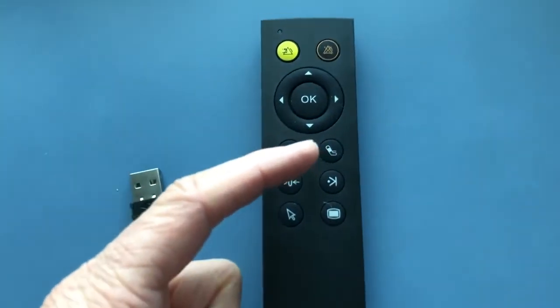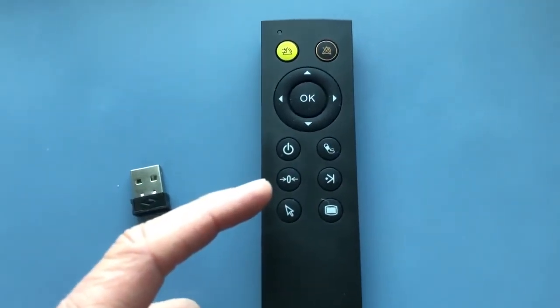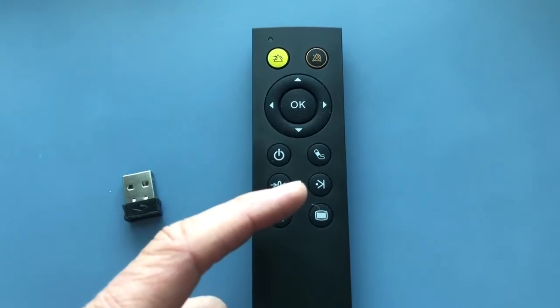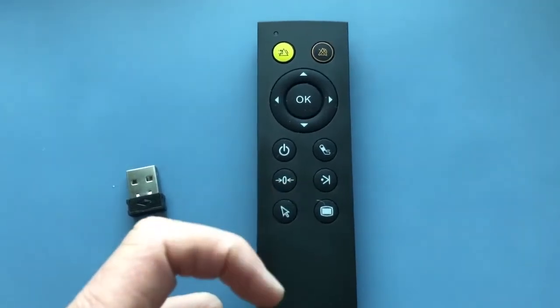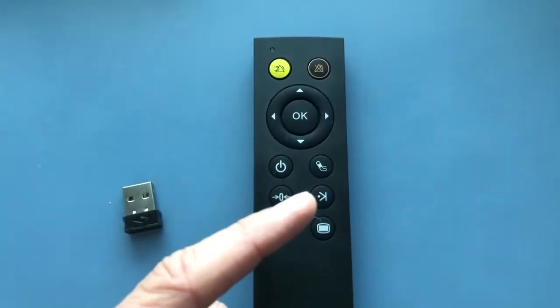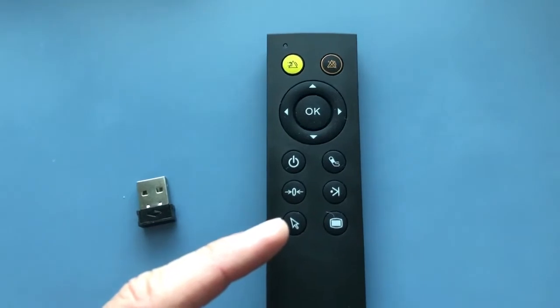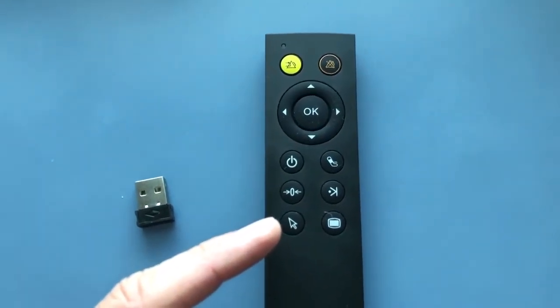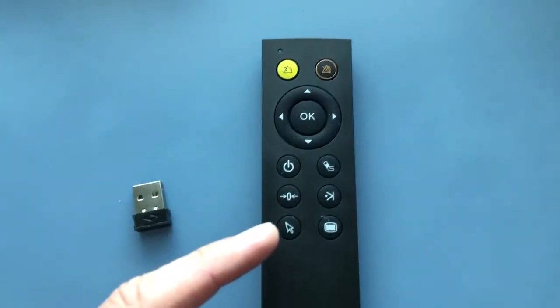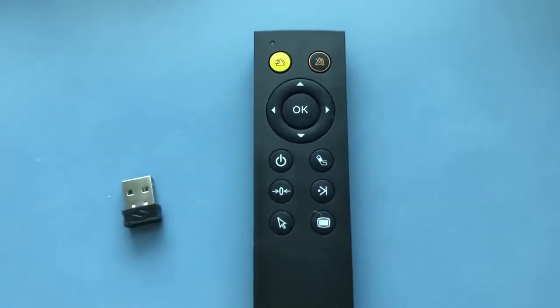The standby key puts the monitor into standby, or a non-invasive blood pressure can be taken with this button — start and stop. This button is for invasive pressure monitoring zero, and this one creates a manual event. With electronic health records, when you want to create a manual event — for example because the patient is having a feed, a seizure, getting up, or whatever — that will allow you to input data into the health record. Probably the most important one is the mouse activation and click button, which activates the mouse function and allows you to click as you would with a mouse. This one is the main menu button to find your main menu.